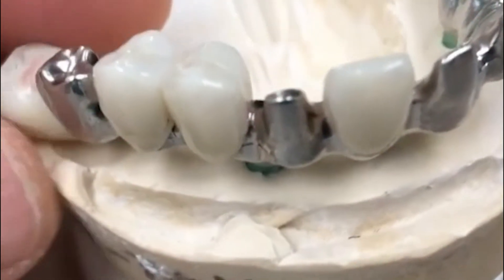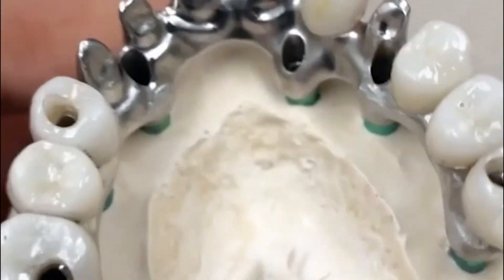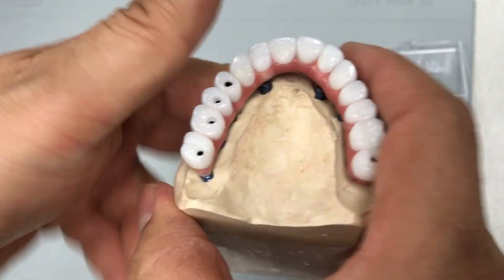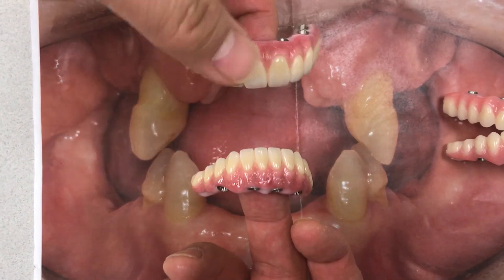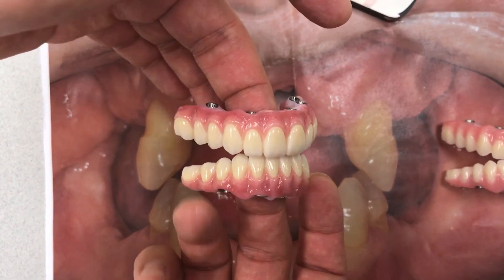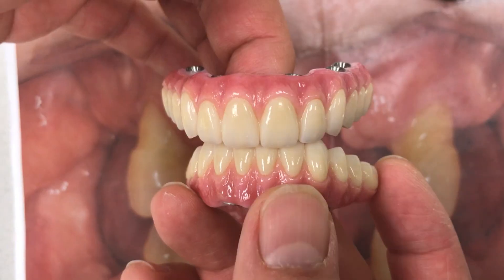Let me show you more detail. Here is the frame design, here is after sandblasting, here we are baking, and here is the final restoration with individual-looking teeth. This one we finished — top and bottom, maxillary and mandible — the finished restorations.